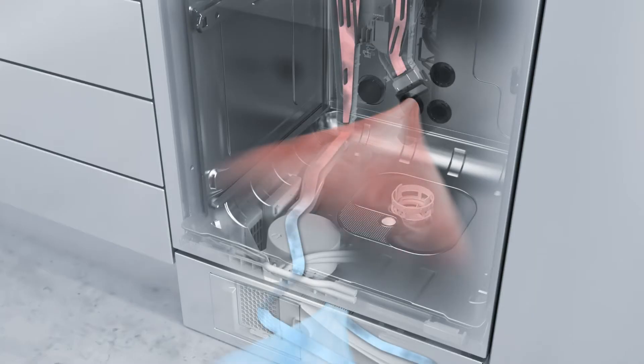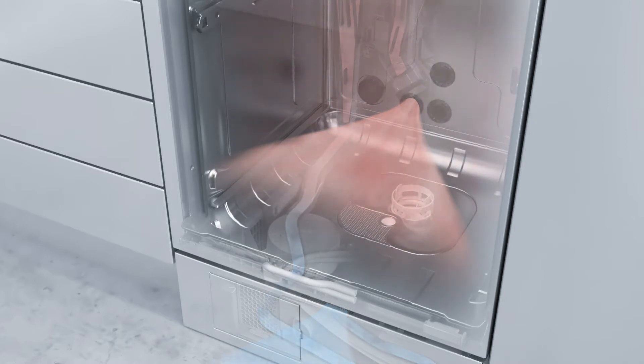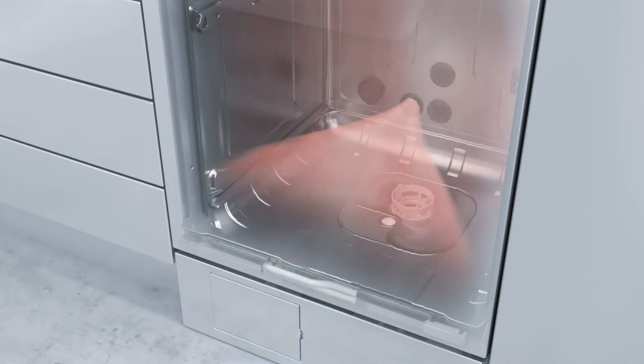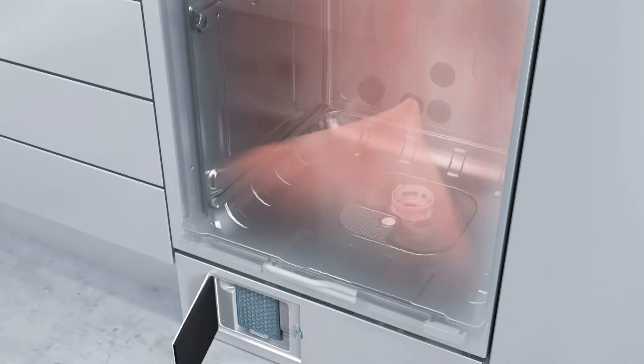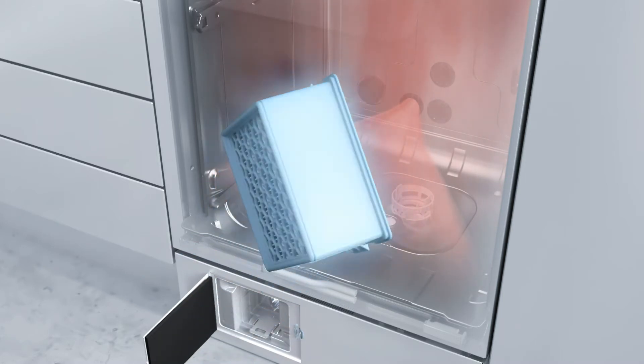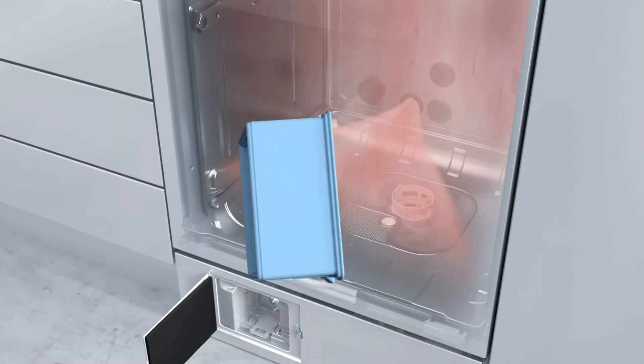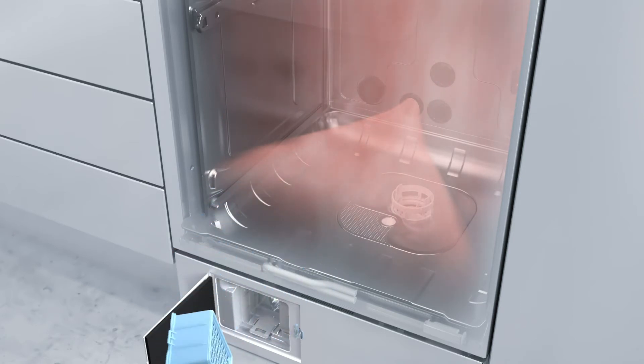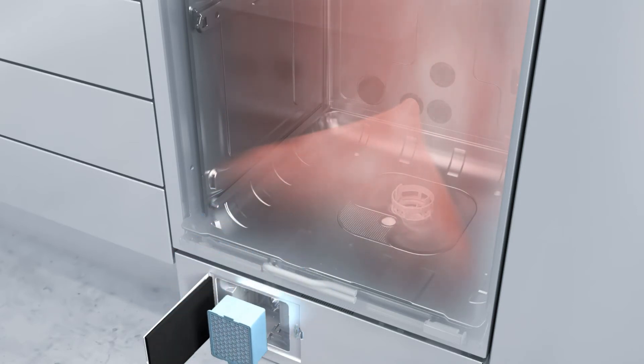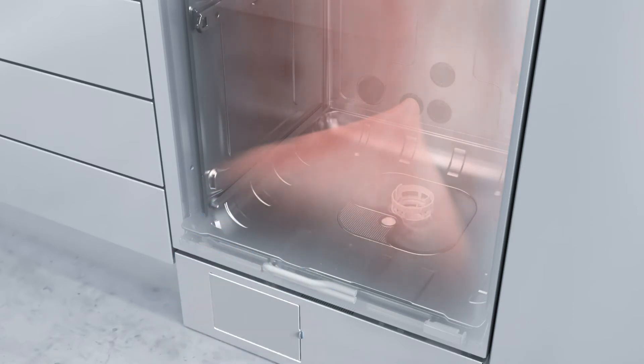Models with Dry Plus represent the ideal system for lumened instruments and cartridges, due to their hot air drying. An upstream class H13 HEPA filter ensures the reliable removal of particles from the air taken in for drying. The filter is easily accessible via a hatch in the front plinth.